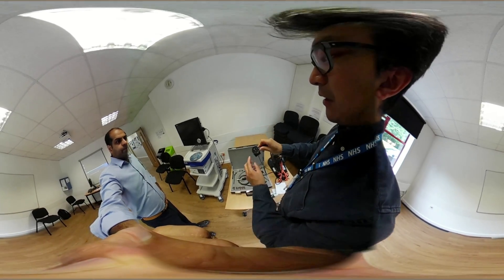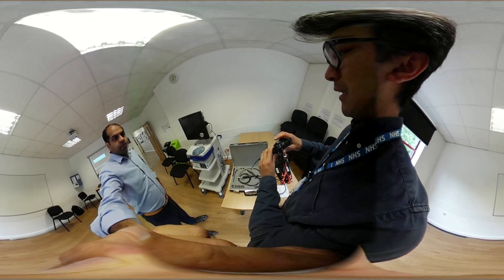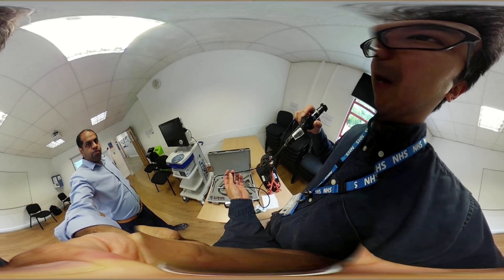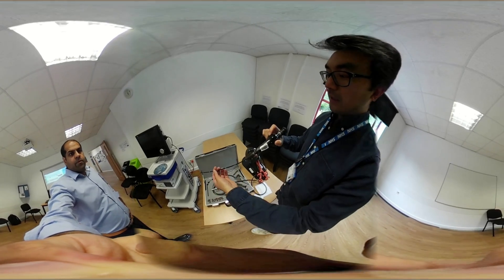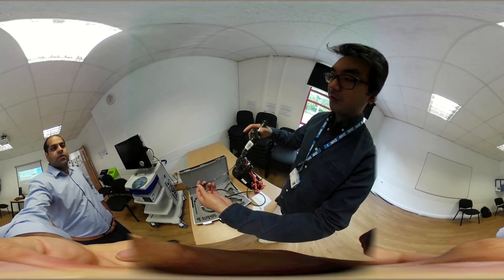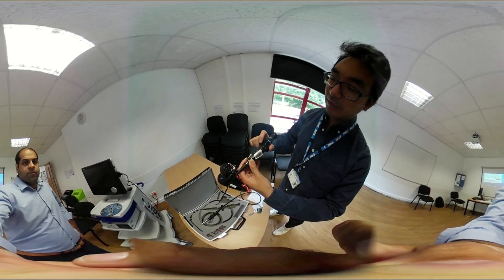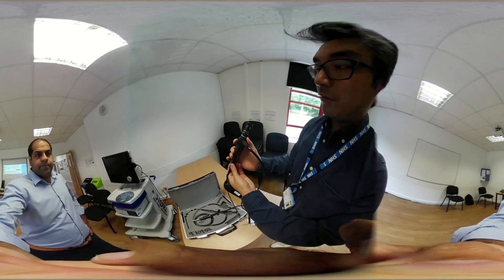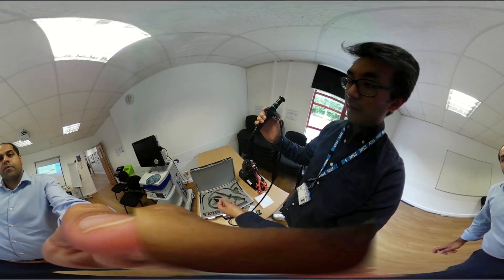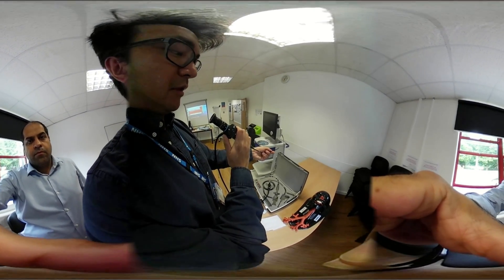This is the eyepiece. This controls the focus — we'll show you in and out of focus on the camera later. This is the finger control which adjusts the angulation of the tip. There are different ways of holding it. You can hold it with the finger control up, gripping with your thumb underneath the eyepiece, fingers across the light lead, and using your index finger to control the angulation. Alternatively, you can invert the grip with the finger control pointing downwards and use your thumb rather than your index finger. Practice both and see which feels more comfortable.